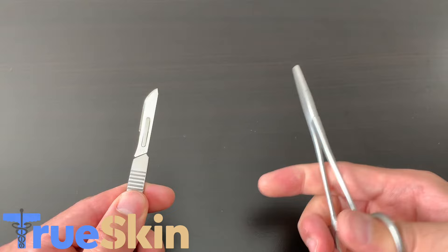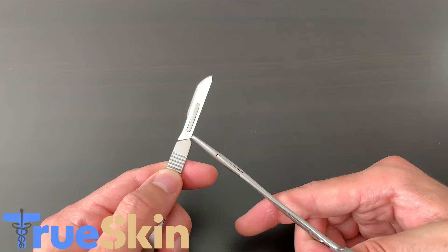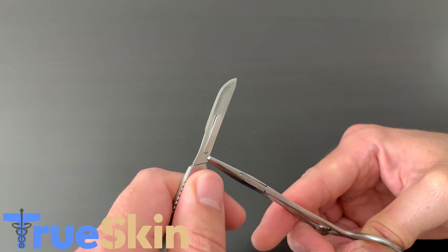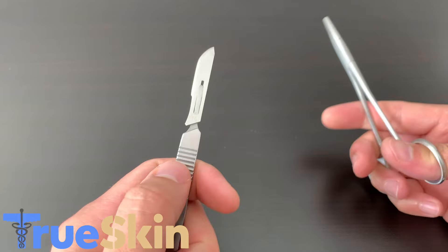When you're done, to remove the blade, grab it at the bottom and lift up that bottom over that lip. Push up, and usually at this point you'll lose the grip because it's such a small area. So go ahead and re-grab the fat part of the blade on top and slide it the rest of the way off.